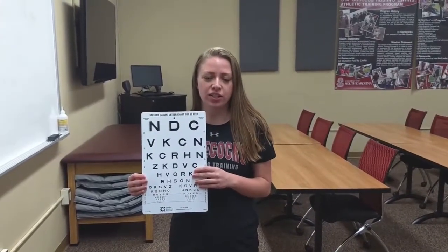Hi, I'm Caroline Taylor, a third-year athletic training student at the University of South Carolina. Today I will be talking about how to use a Snellen eye chart.